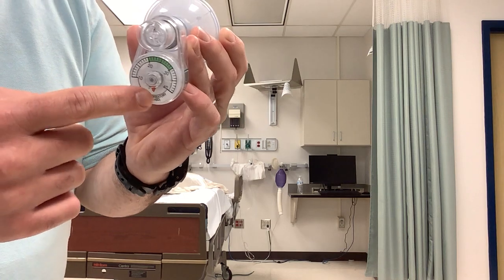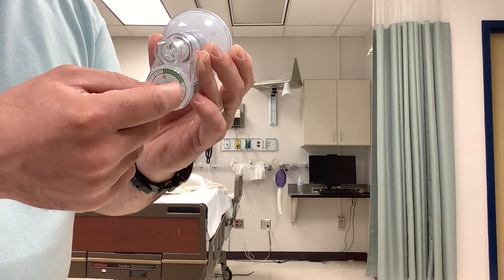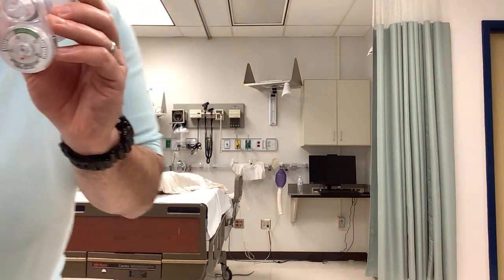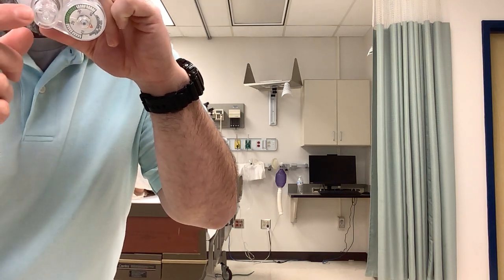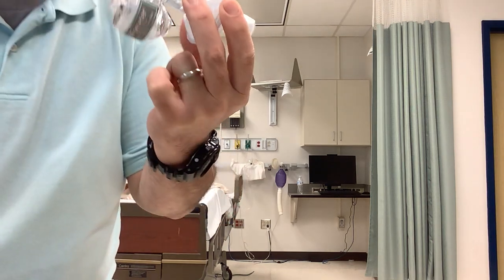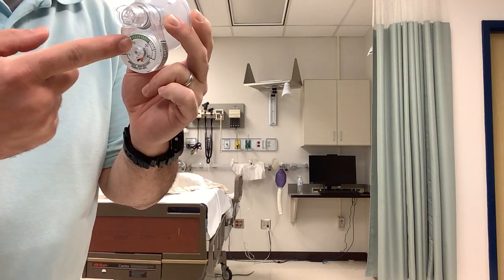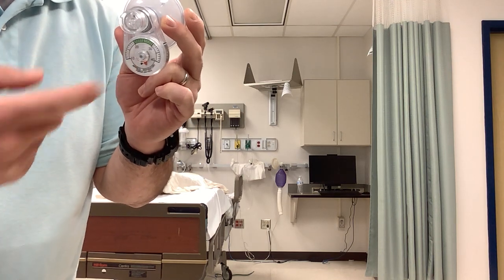You can see it's on the opposite side of the black arrow — it comes down and stops essentially at the zero mark. Breathing in normally and pulling as much as I can, I'm able to generate enough inspiratory force to sustain spontaneous ventilation. Green is good. Typically you want it to be greater than negative 20 to negative 30, which I was when I did that.